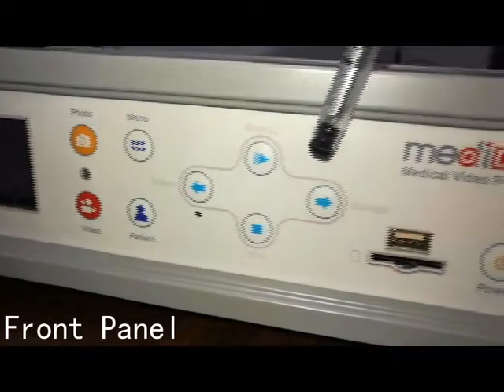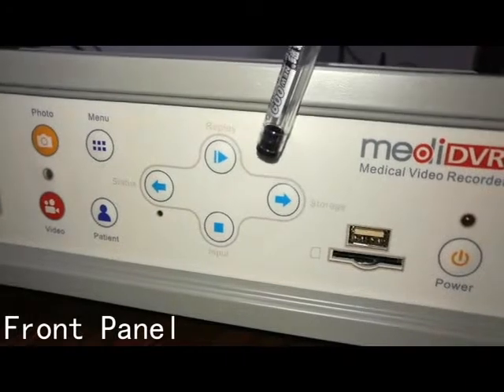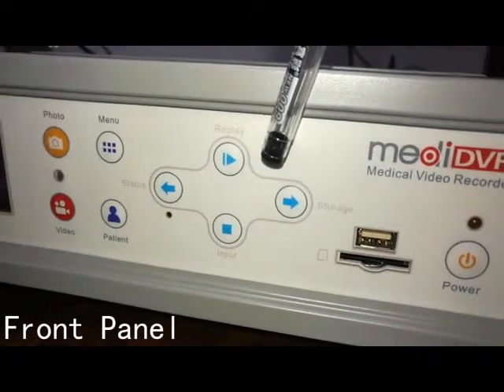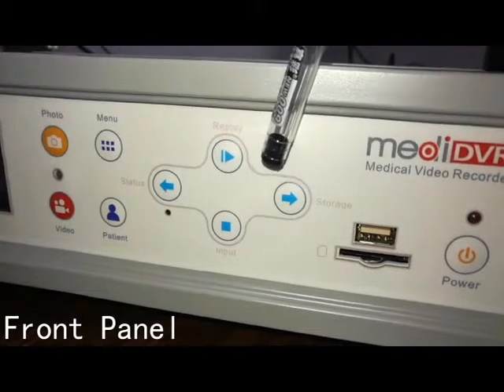The selection buttons are used to move cursors, confirm changes, and return. Besides, they are all shortcut keys in the normal status.